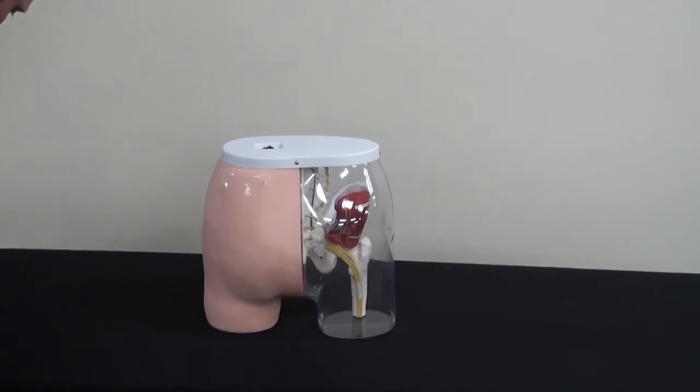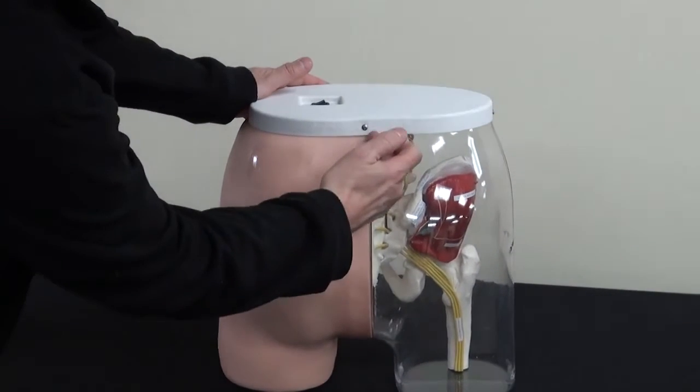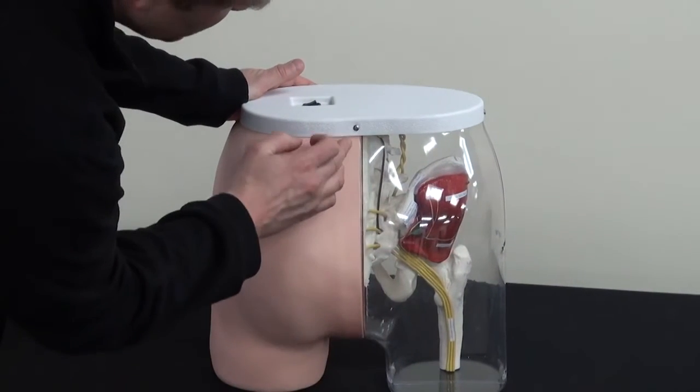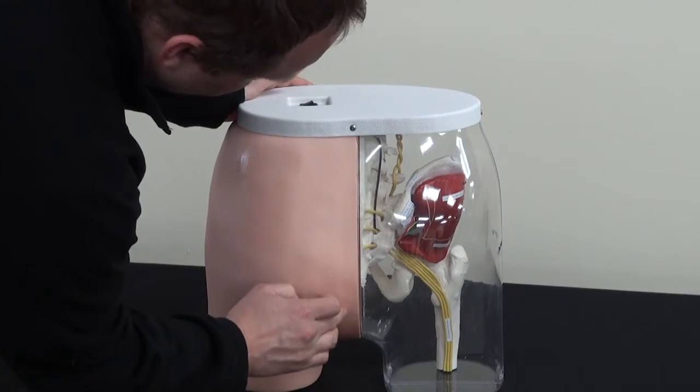Now it is best that you have it marked off in quadrants. So the actual middle is not right here. The actual middle comes right along this side.